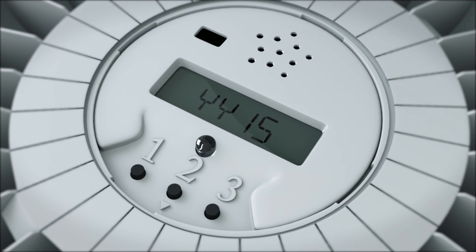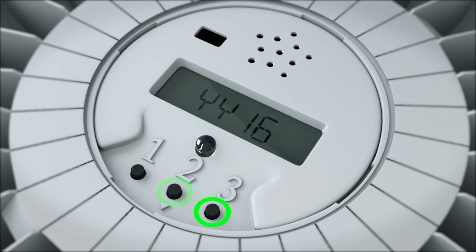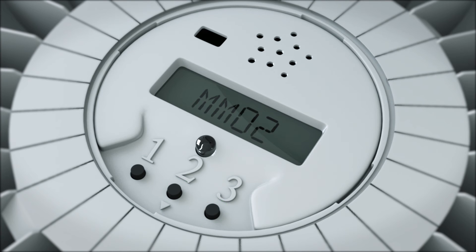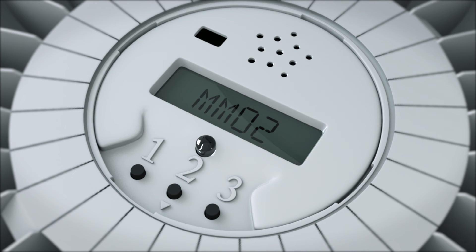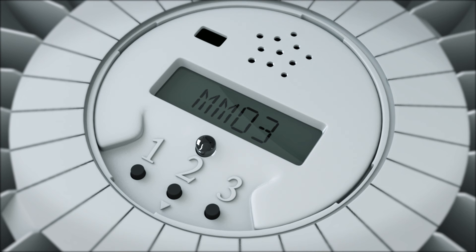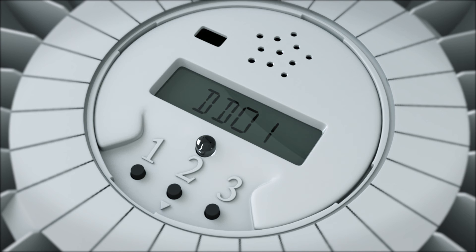Set the year using buttons 2 and 3, then press 1. MM will be displayed. Use buttons 2 and 3 to set the month, then press 1.